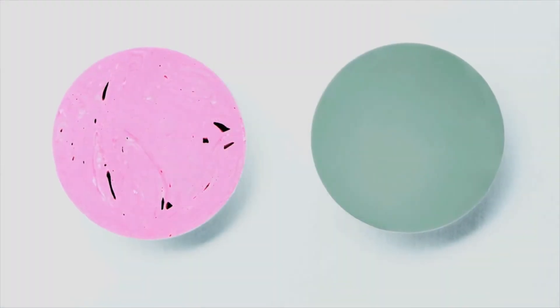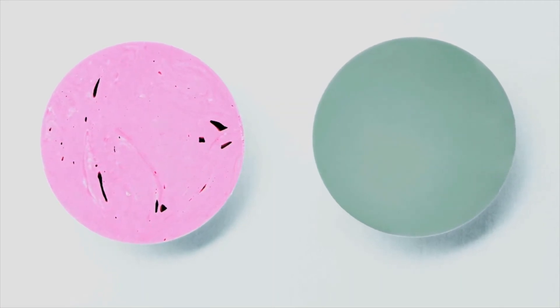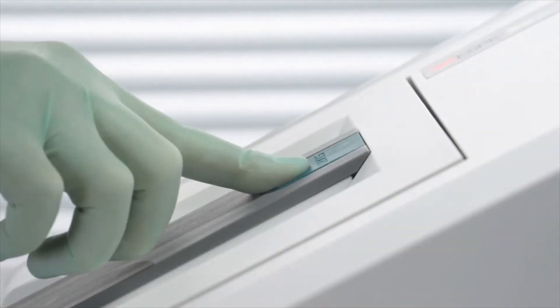Better yet, the PentaMix Lite delivers homogenous, void-free mixing results for precise impressions and reduced costly retakes. All of this at the push of a button.